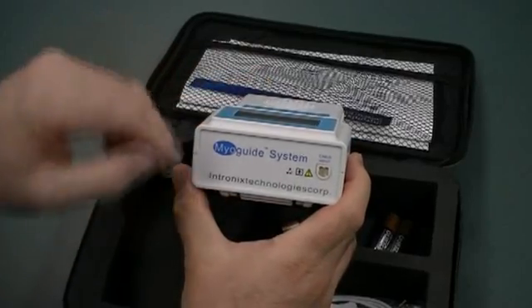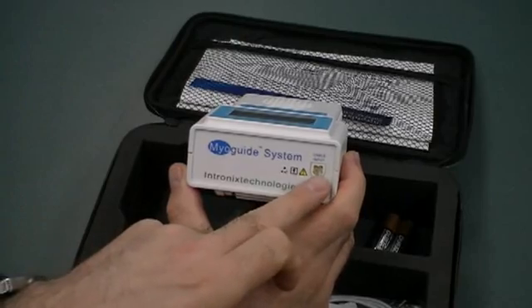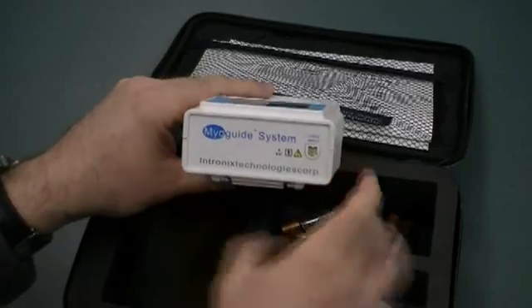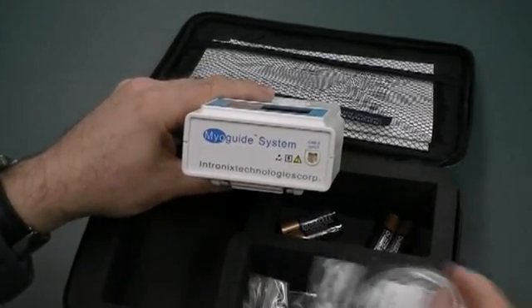On the front panel, just at the head of the device, you have the input cable, labeled input cable. And we'll be showing you what's going on with that, how to plug in the input cable in a minute.